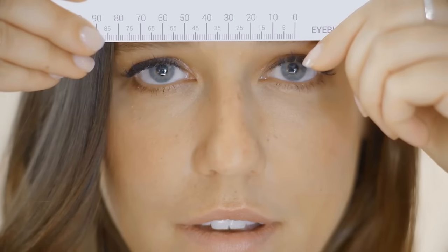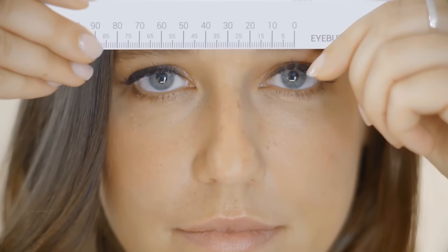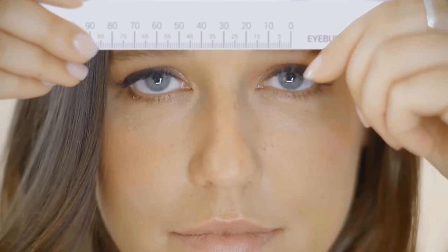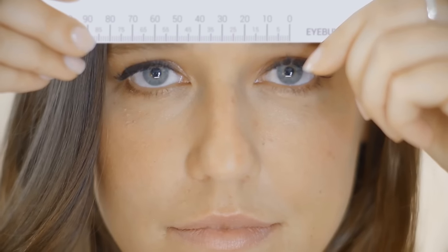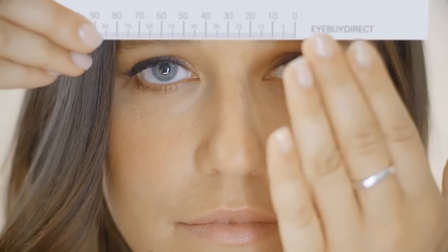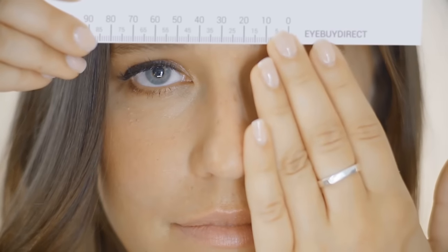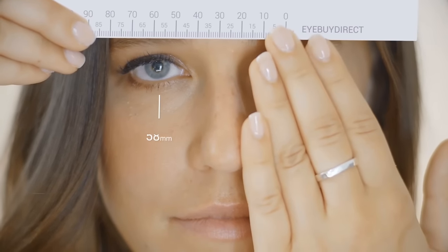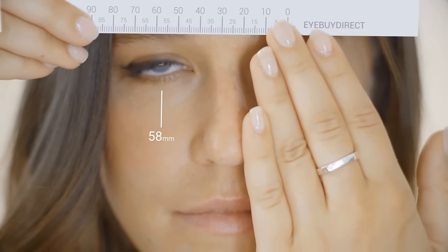It is also very simple to measure your PD by yourself. All you need is your PD ruler and a mirror. Stand about 8 inches away from your mirror. Hold the PD ruler over your eyes, centering the zero over your left pupil. Once centered, cover your left eye. The number directly over your right pupil is your PD.